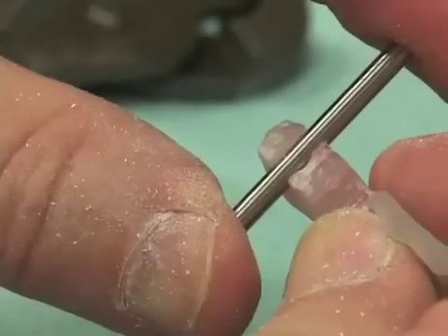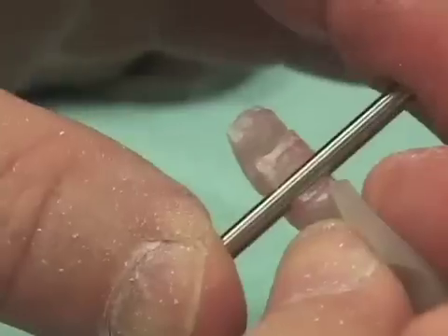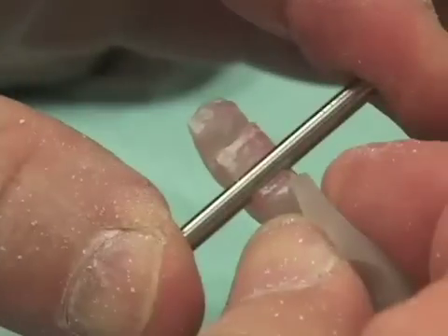When placed in, no mesiodistal tilt. This completes our 3.5mm drill guide. There's just one more drill guide we need to make, and it is the 4.2mm drill guide.